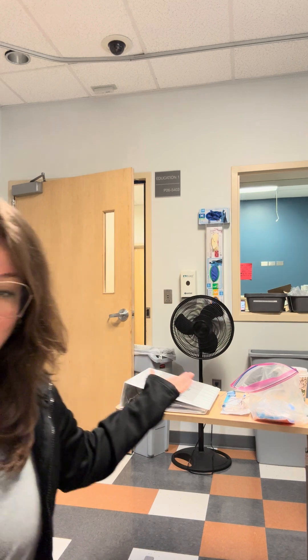Good morning from the University of Colorado College of Nursing Sustainability Workshop. Today we're going to talk about how to use these self-sealing packages. For the longest time we were putting all of our tubing and stuff like that in Ziploc bags, but we're starting to go away from that. We do not have an autoclave, and I'm not certain that we need one at this moment, so we're going to show you how to do it without it.